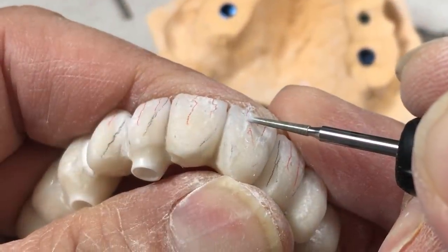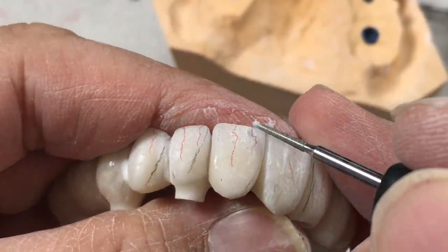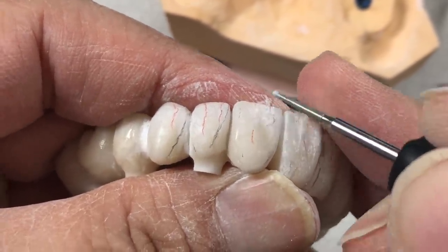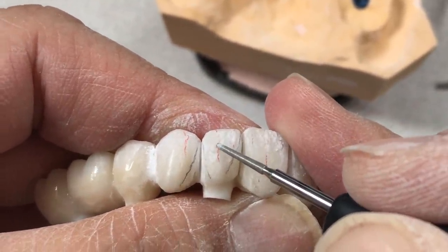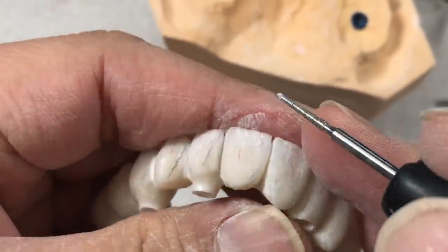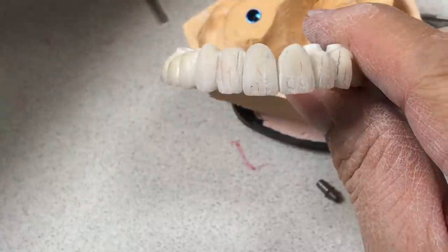Here's the vertical direction — it's not the same level: heavy, light, down — like that. Heavy, light. It's not straight, it's a little zigzagging, but it's intense. So this is the vertical dimension — vertically I create the texture — so then I can get the better, longer 3D dimension.